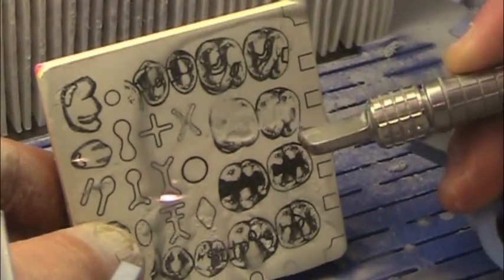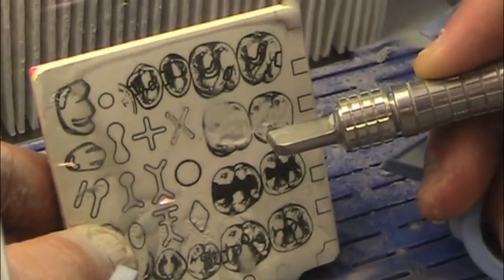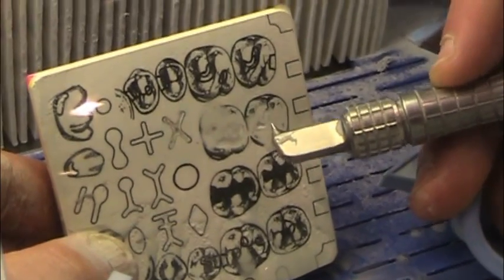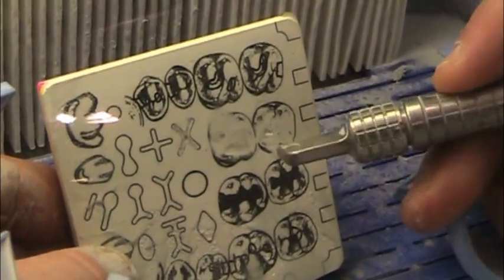It's just cleaning things off and doesn't cut quite as fast. So you have lots of control with this particular unit. Excellent control that allows you to do very good minimally invasive dentistry.